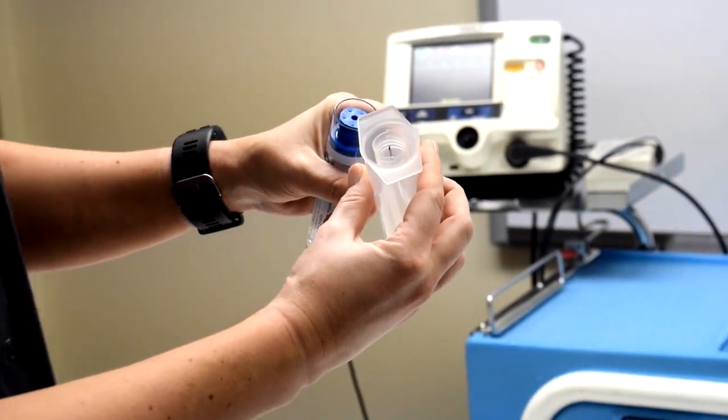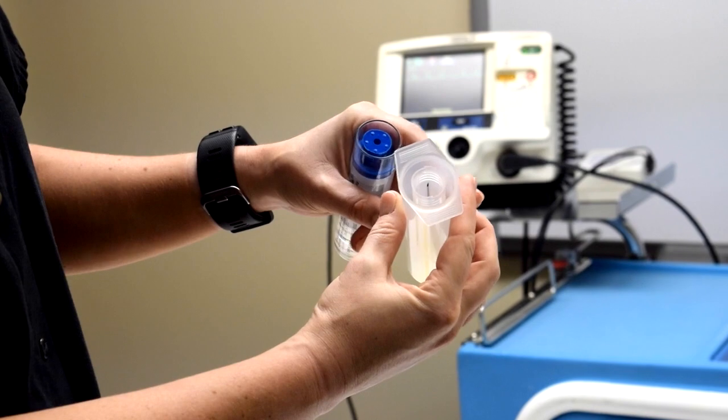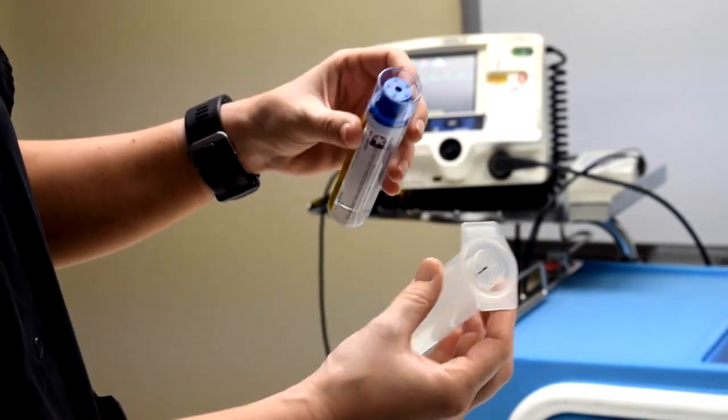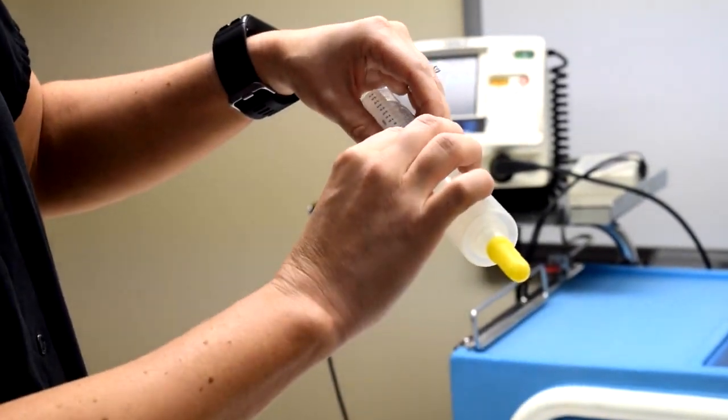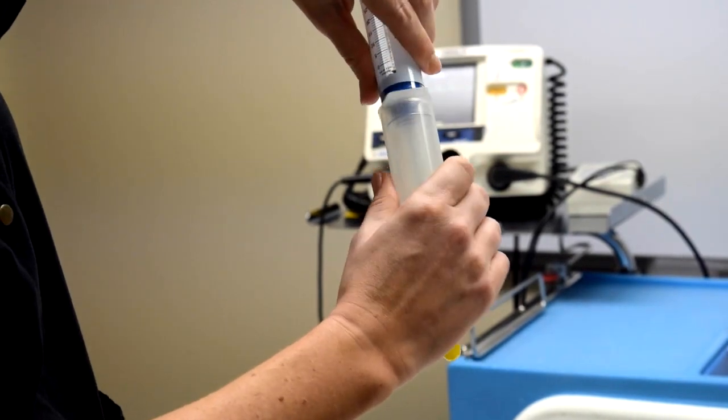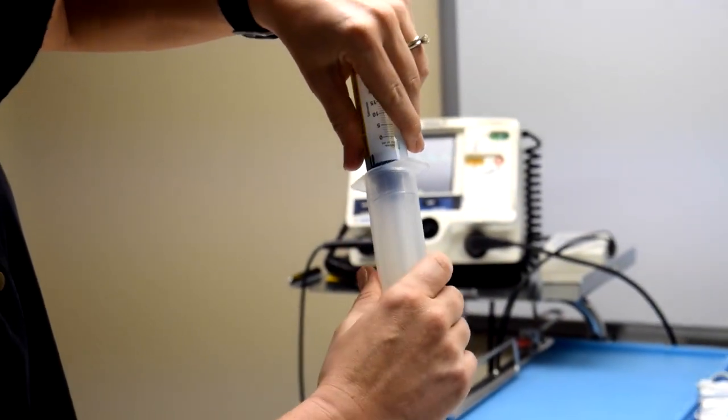Now be careful because you'll notice right in here there is actually a needle in there, so to keep with sterile technique or clean technique, you'll just go ahead and screw those in there. You'll see the little threads in there, and they just screw together like that.